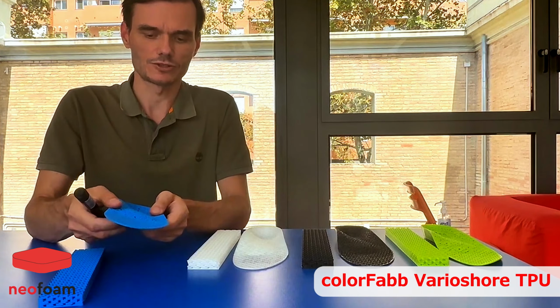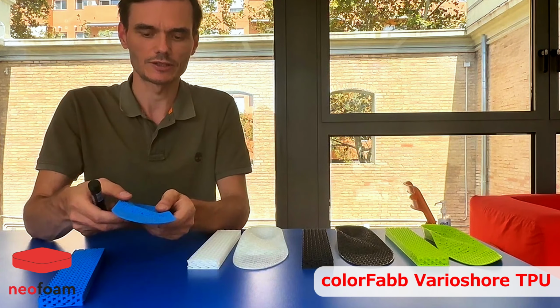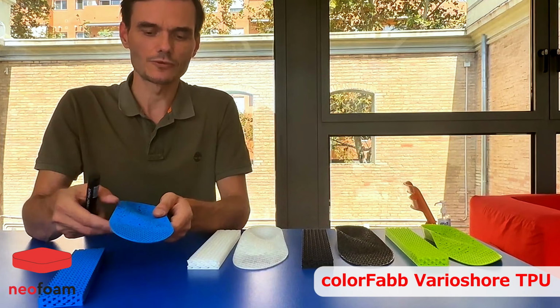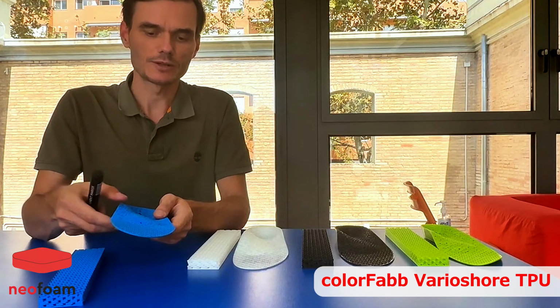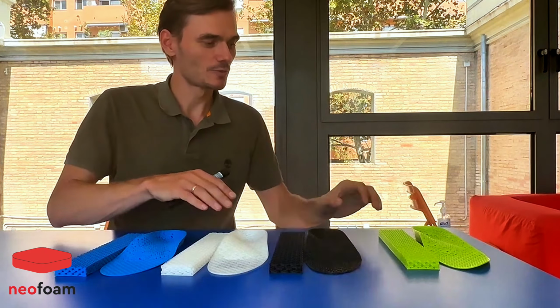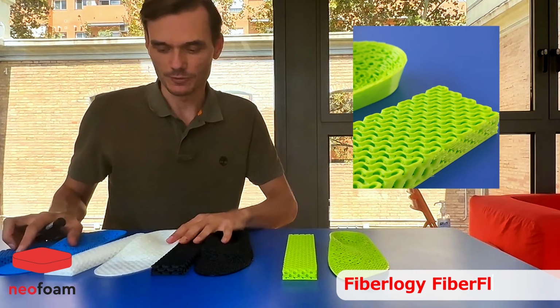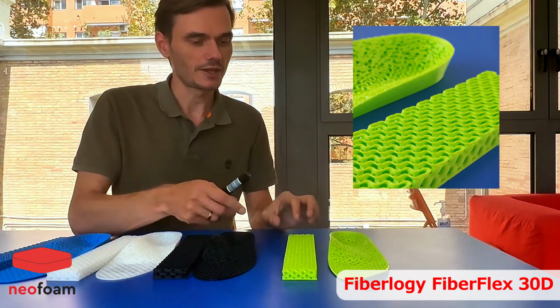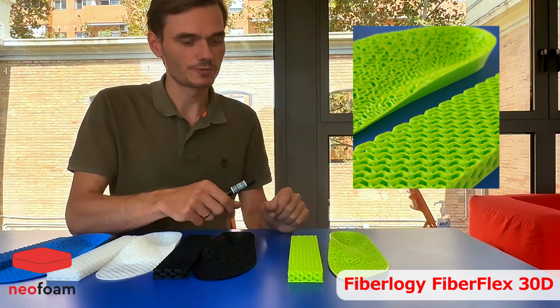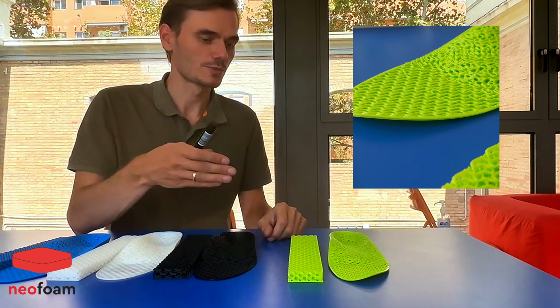The main advantage of this material, even more than the weight, is the amount of energy that it can absorb. This is the best material for energy absorption. For example, it is the best material for diabetes. And let's move to the 4th one. This material is very different from these 3, because the main idea of this material is not to absorb the energy, but to return it. This is the best material for sports applications.